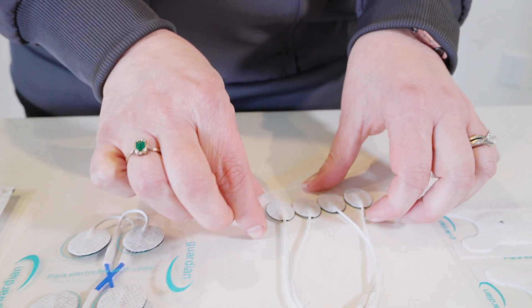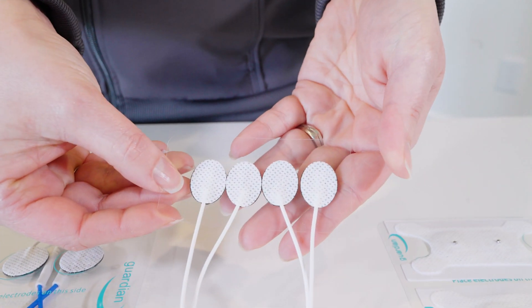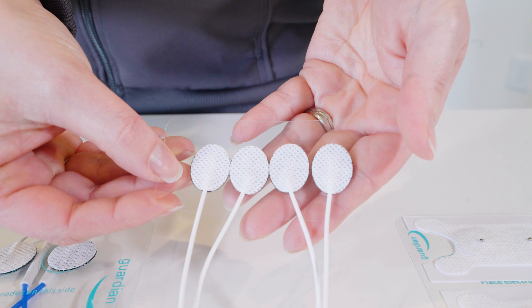The 0.87 round is great for either older kids or more petite-framed adults. We also have a pediatric size — 0.67 by 0.87 — for younger children.